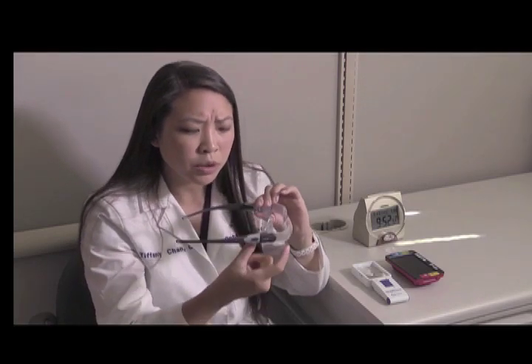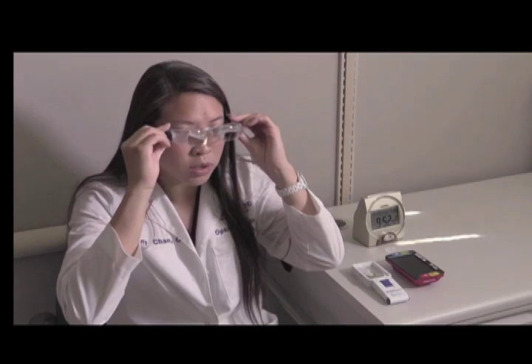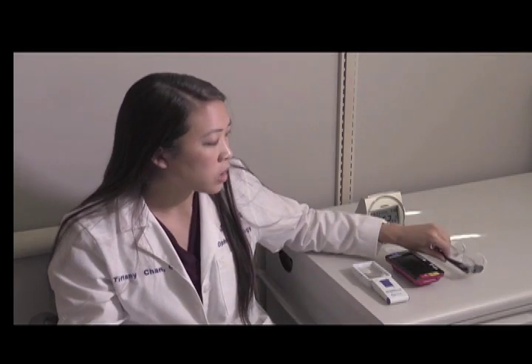Sometimes people have difficulty seeing things at a distance such as faces or watching television. This is an example of telescopic glasses. You can see there's a double lens here, and that allows magnification when people are looking at things far away. This type of device is worn similar to a traditional pair of glasses, and you can see how magnified that image is when looking at a distant object, allowing that person to see details or watch television.